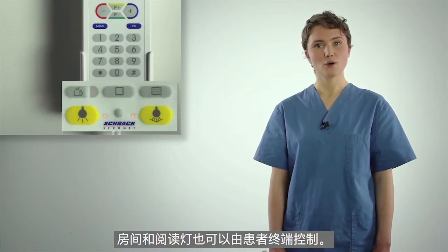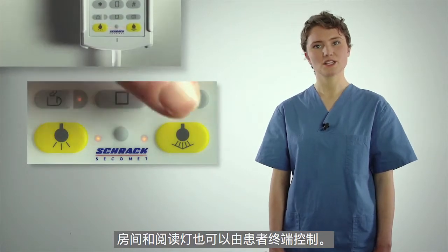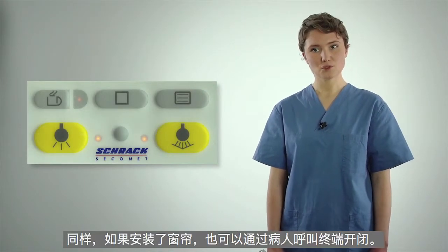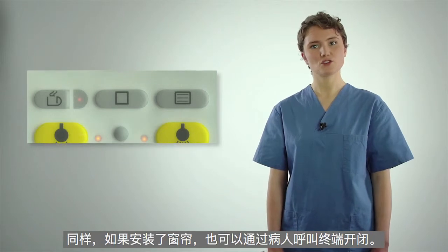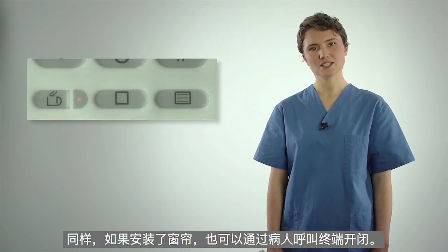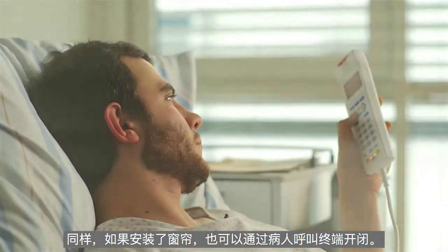The room and reading lights can also be controlled with the patient terminal. Equally, the window blinds, if fitted, can also be operated via the handset.